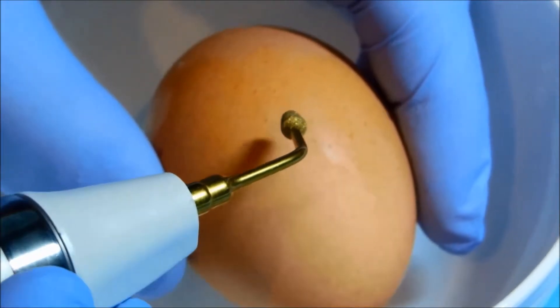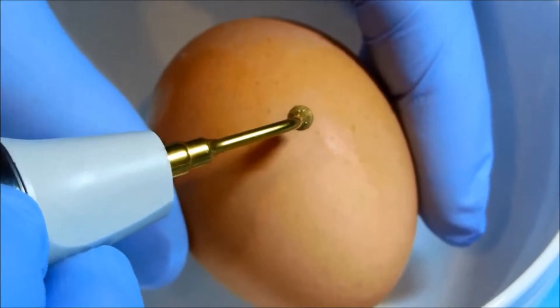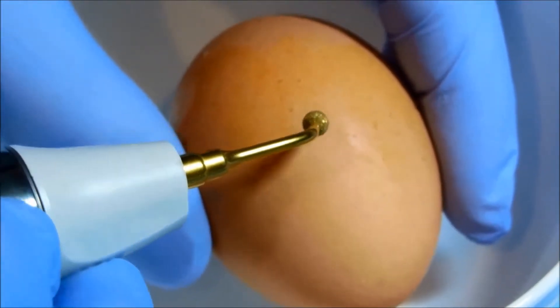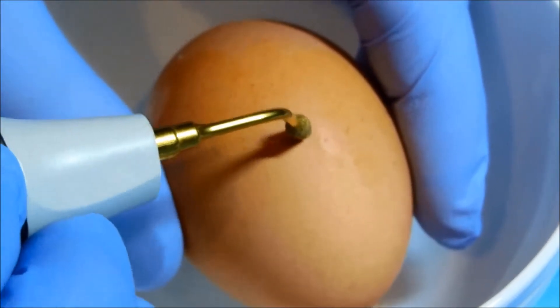It has many tips. Some of them are for implant placement or for preparation of the bone for an implant. This is one of the tips that I use to elevate the sinus.